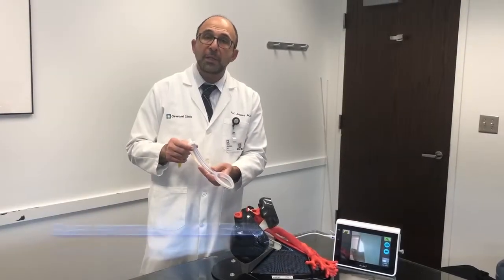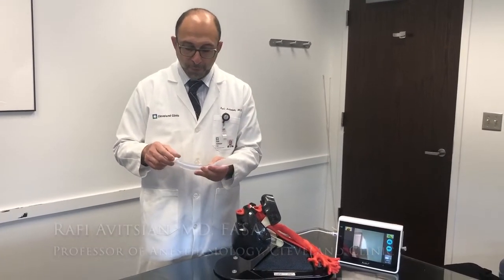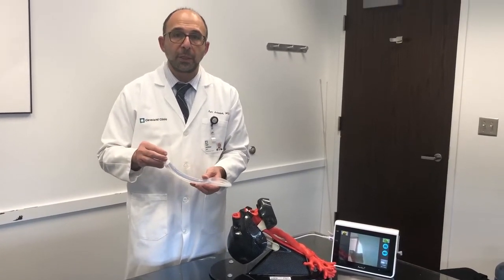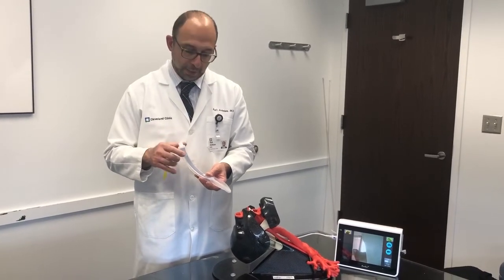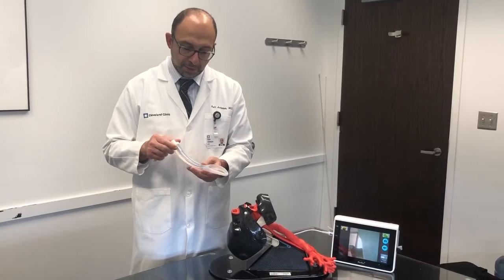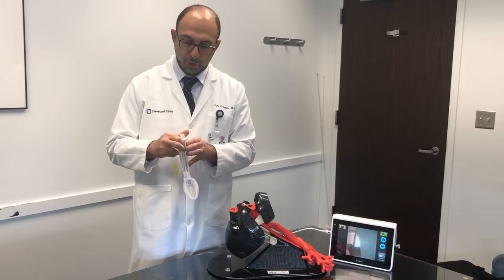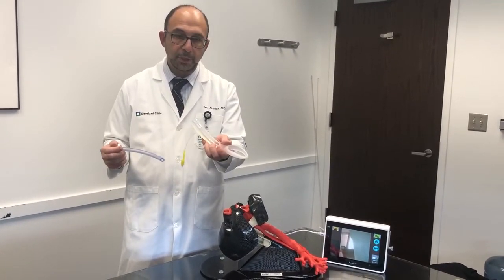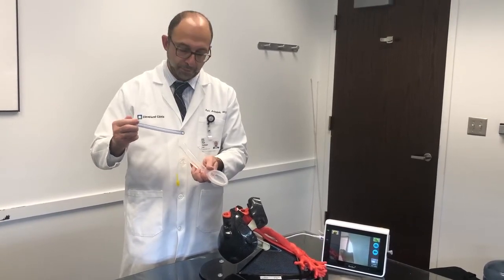The AZ airway is a supraglottic airway with additional features. In its prepackaged form, it seems like any other supraglottic airway, but the tube part is a bit longer, and I will explain later why. The AZ airway consists of two parts: the supraglottic piece, or SG piece, and the replaceable R piece.